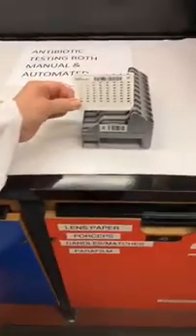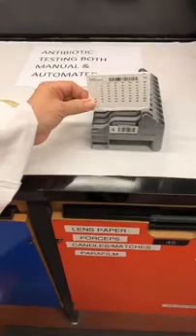We use automated technology for identification and susceptibility testing. The idea in most of microbiology is that you're receiving swabs or other types of samples that may grow pathogens. We look at pathogens, but there's also a lot of normal flora, and we have to differentiate between what is normal and what is abnormal that's potentially causing an infection. We use something like this little card that can do both identification and susceptibility testing.